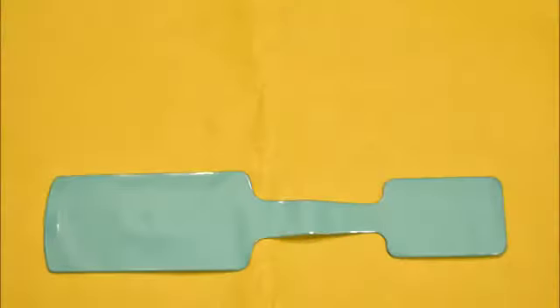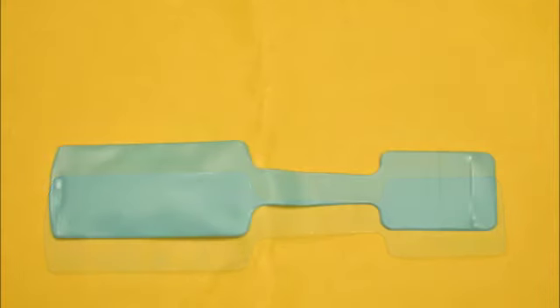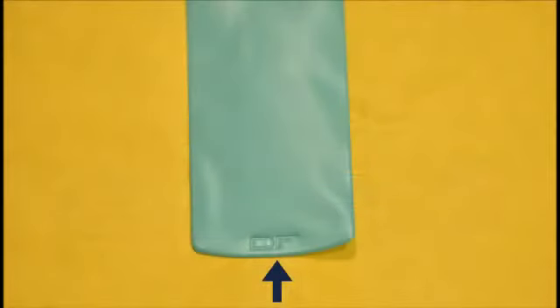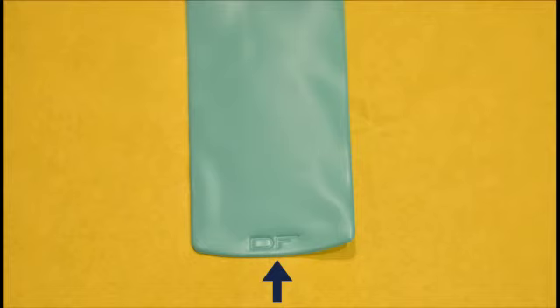The film is available in two variants. The one we have here contains monobath solution where the developer and fixer are in the same compartment, whereas the other variant has separate ones.